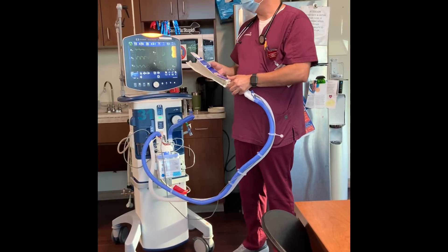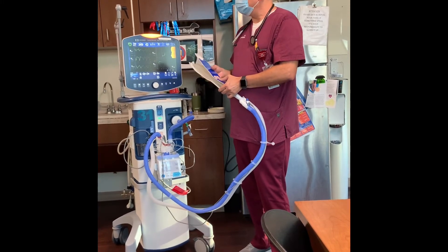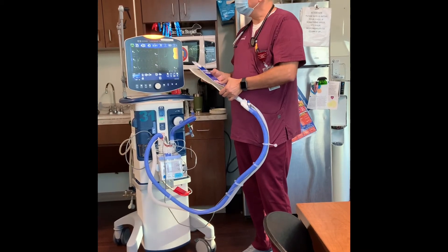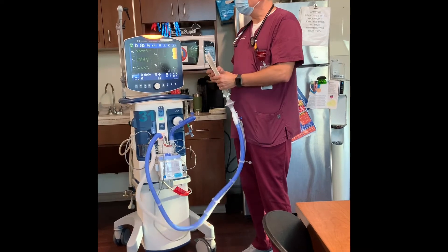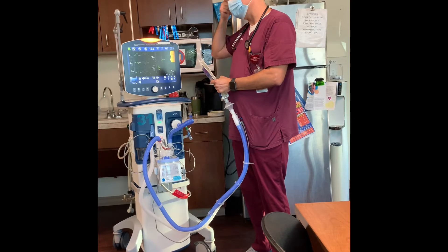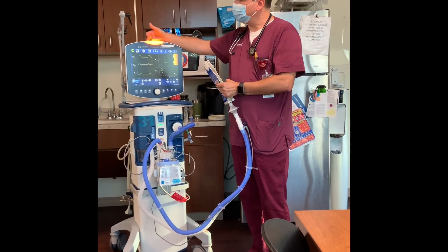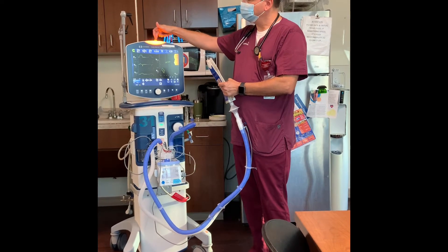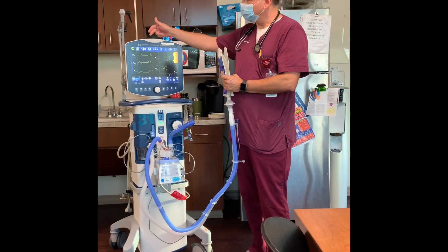A medium priority alarm is three beeps intermittently — it'll beep three beeps, then silence for a little bit, then three beeps again. Whenever you get an alarm notification, low and medium priority alarms will be displayed in yellow.